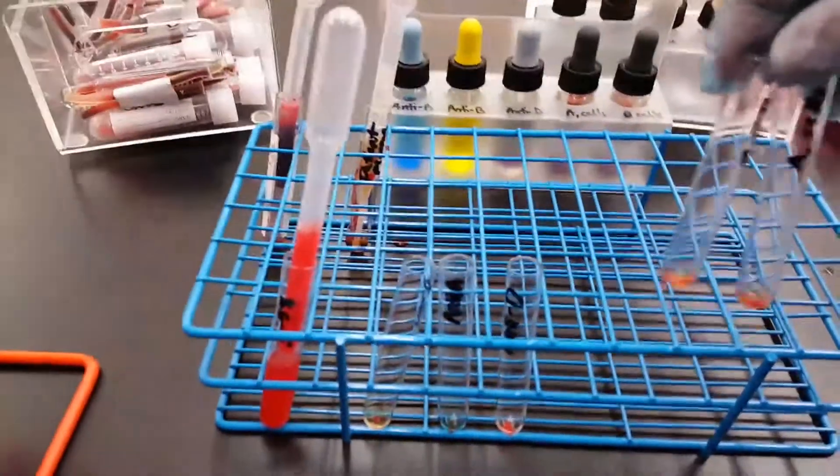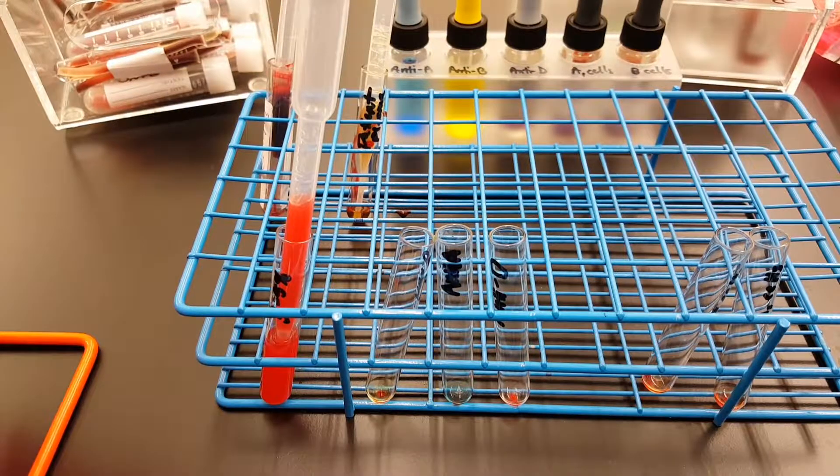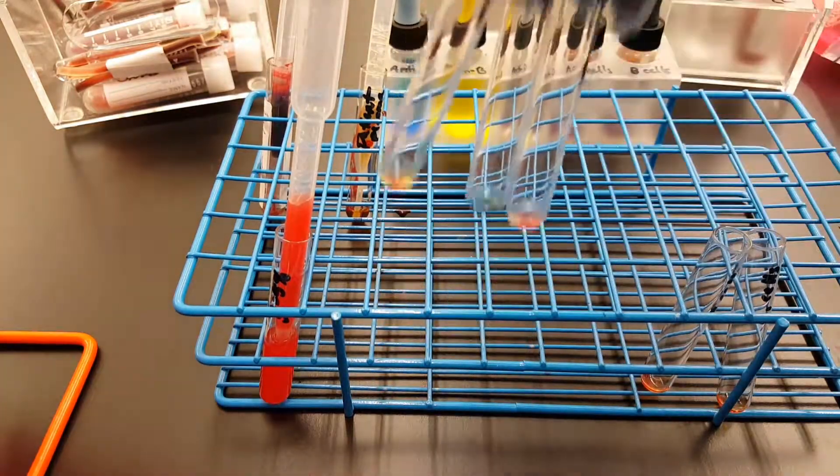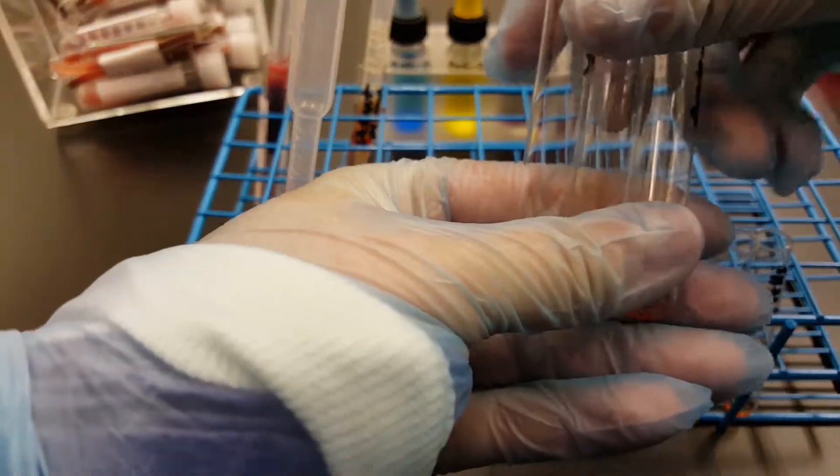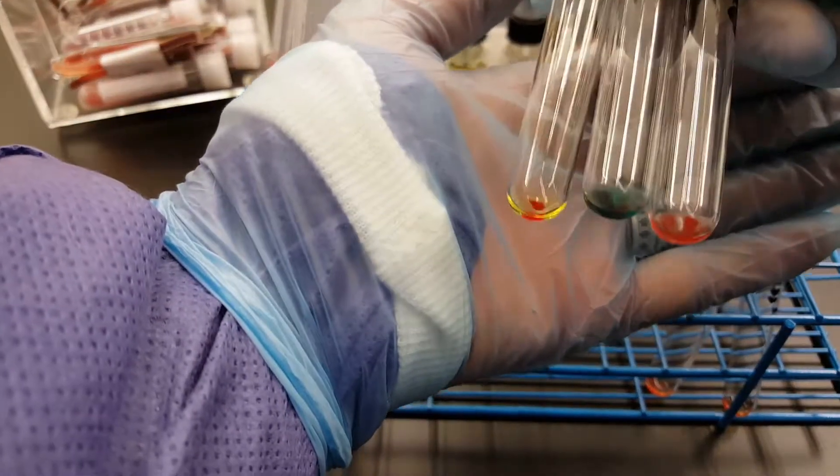Okay, so we do have buttons there. Now to judge if there really is agglutination, you're going to pull them up, take them in your hands, hold them gently, and you're going to just shake them ever so much. Just a little flick is fine.